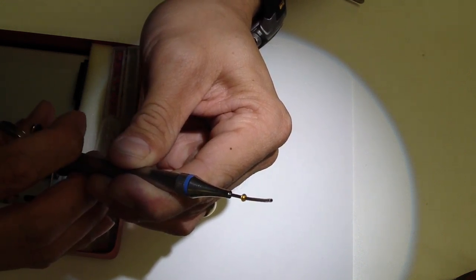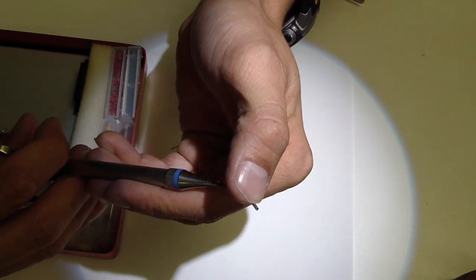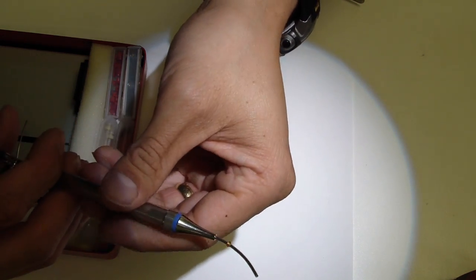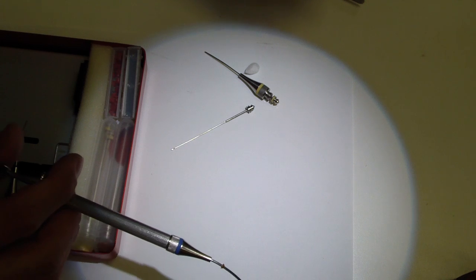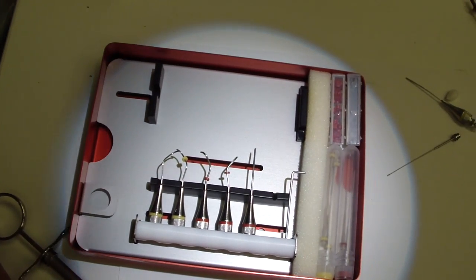There has to be a clearance. That piston stops to about here for it to pick up any material. That is the same principle for any of the angled carriers for your apical surgeries.